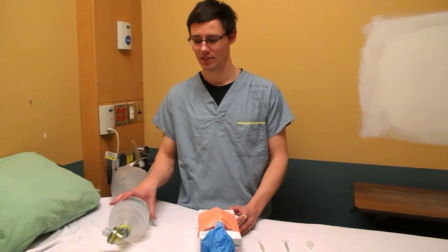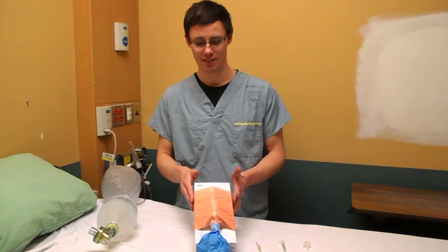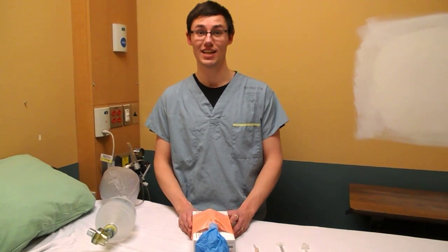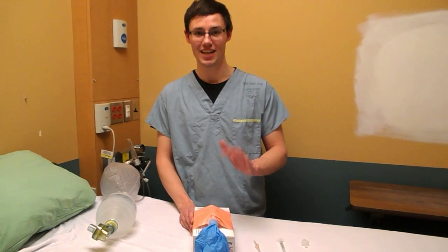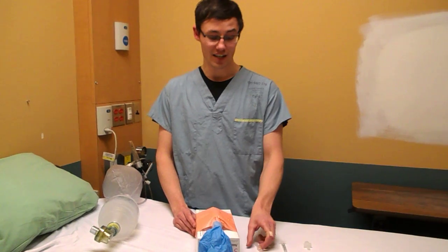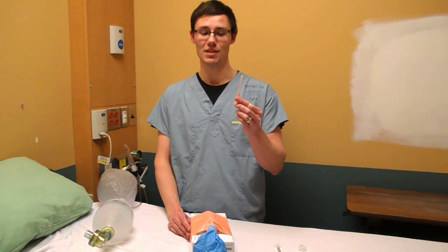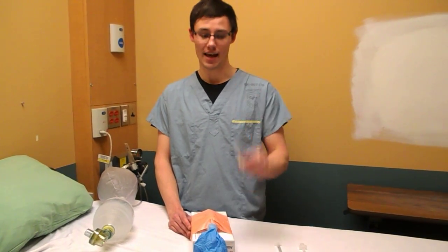What are you going to need for this? A bag connected to an oxygen source, and a cric trainer. If you don't know how to make one, watch my previous video. People told me I did a lot of Vanna Whiting during that video, so I'm going to try and tone that down today. In addition to that, you're going to need your shortest, fattest gauge catheter you can find in the eMERGE. I have a 14 gauge, one and a quarter inch long cathelon.